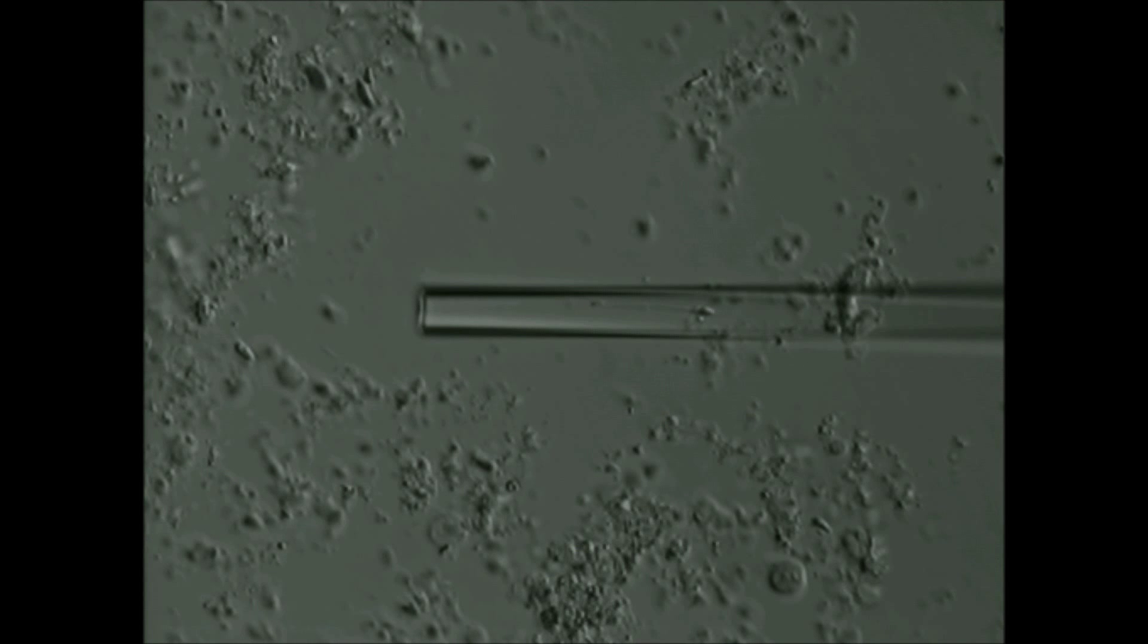The first step is to identify sperm from the testicular tissue, which is similar to looking for a needle in a haystack.